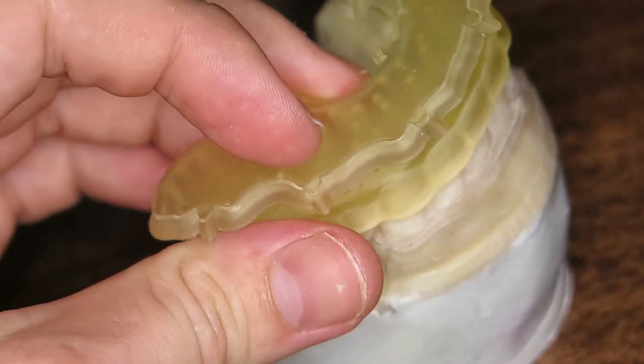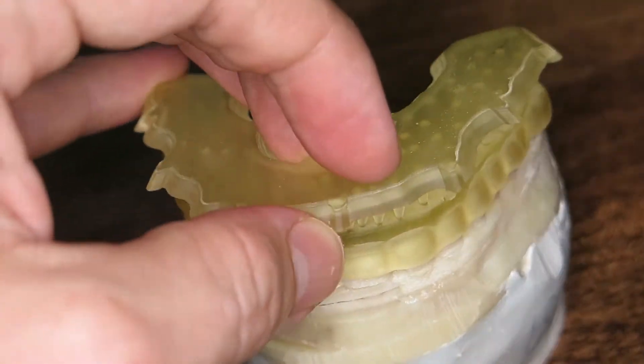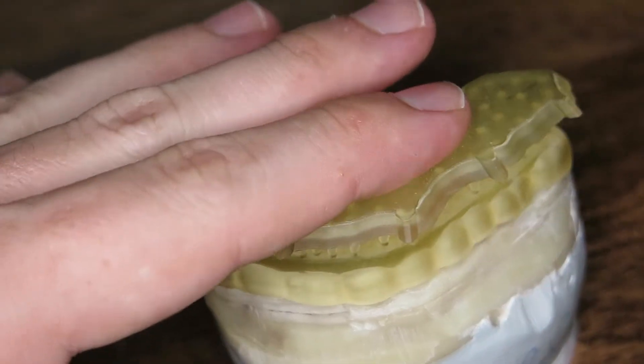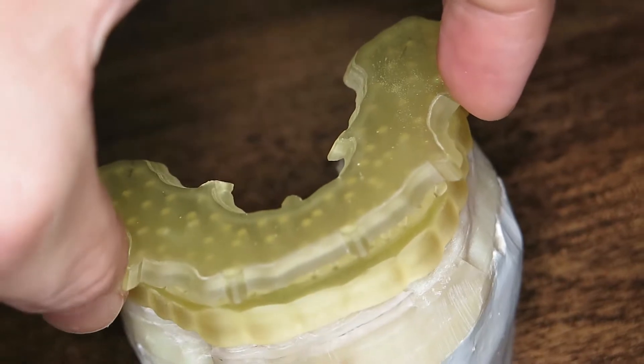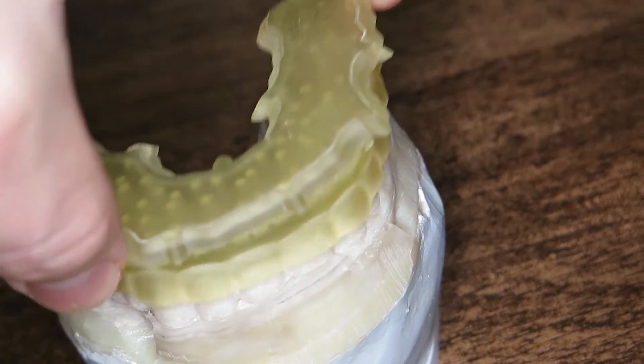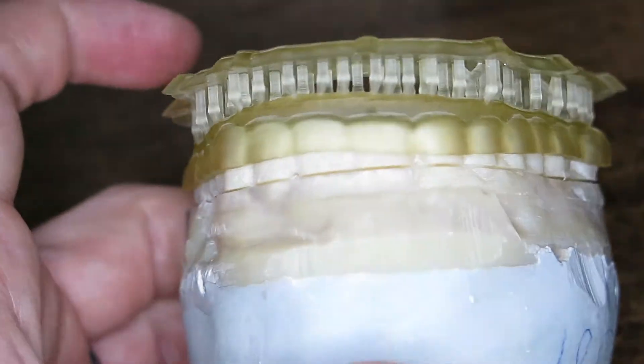I'm getting very pleased with our first round here. It's got just enough tension that if you're not getting it at exactly the right angle, it grabs. This one I think could use just a little more grab, but the overall fit is very good.